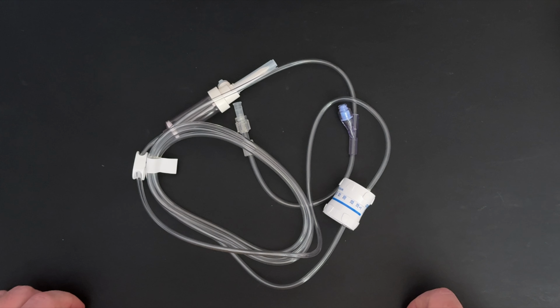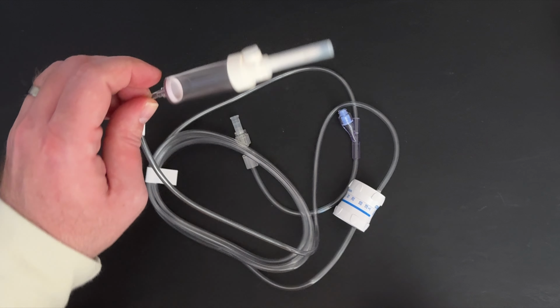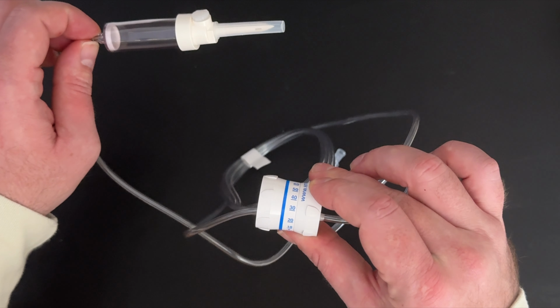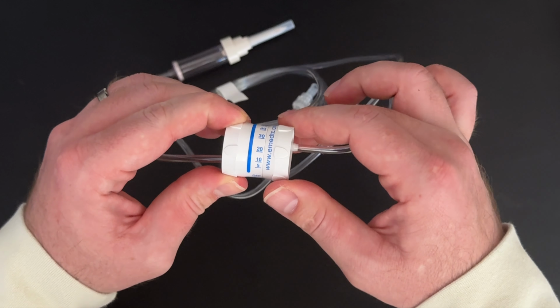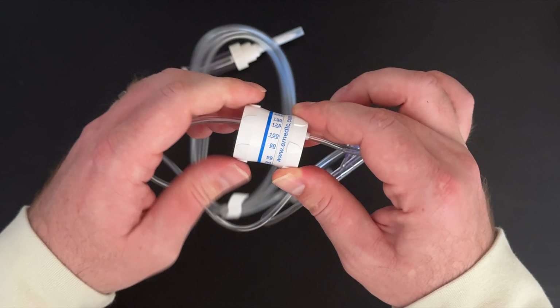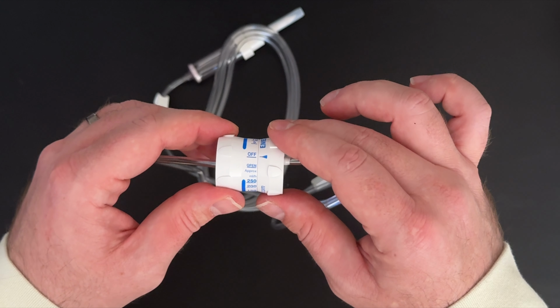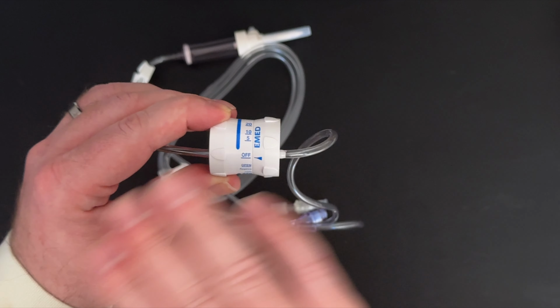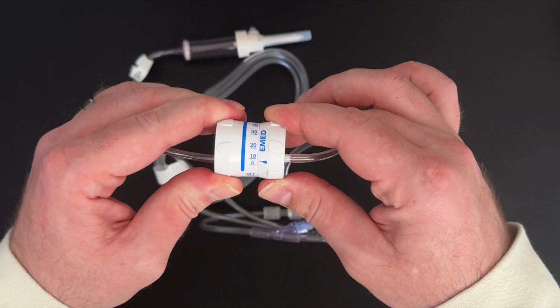When you open your dial-a-flow tubing, it will look like this. You will note your drip chamber first, and then you will also notice the dial-a-flow regulator. The regulator turns and correlates to mLs per hour on the dial. When you get a new dial-a-flow, it will be in the open section. When a dial is set to open, it is free flowing with no regulation. If you turn it to off, there is no flow of medication and all of the flow stops completely.